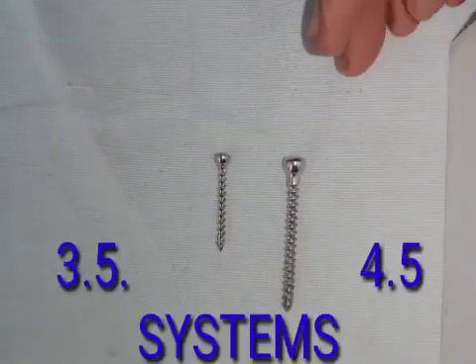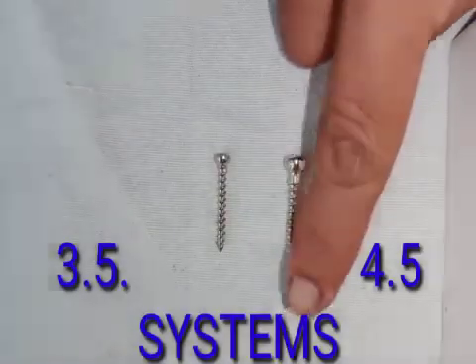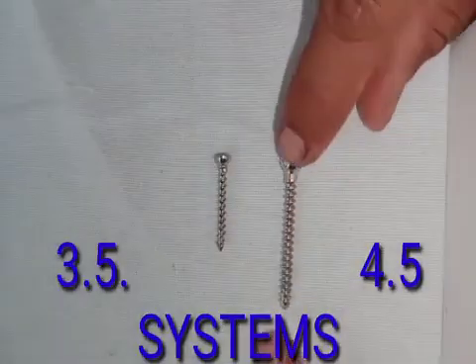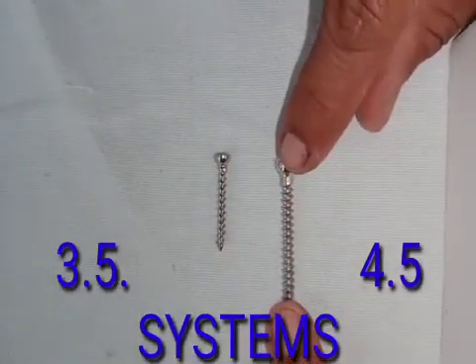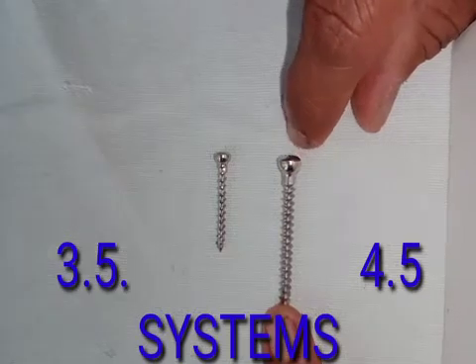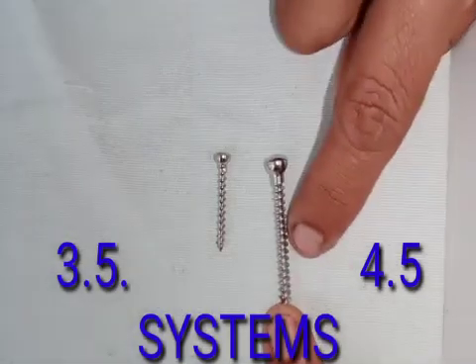Each screw consists of a head, a shaft, and threads. The threads of each type of screw will be different depending upon the function of the screw, which also makes a difference in the name.